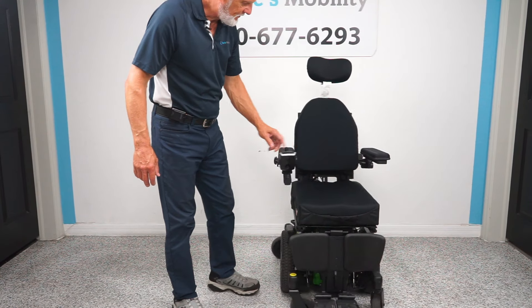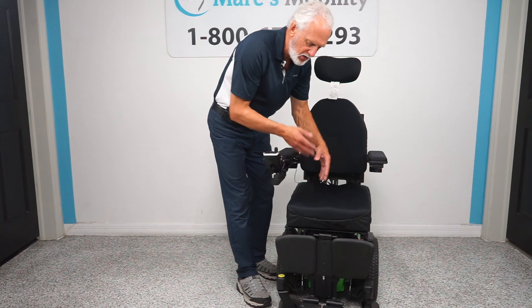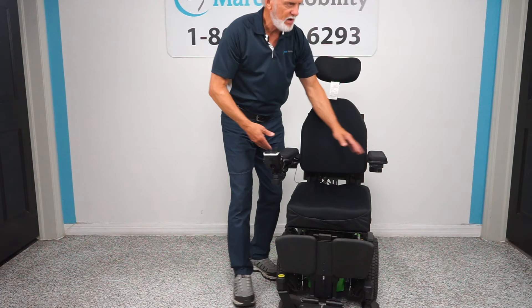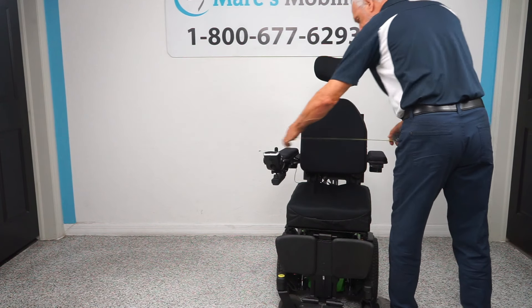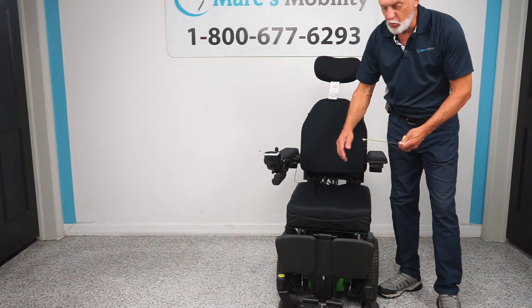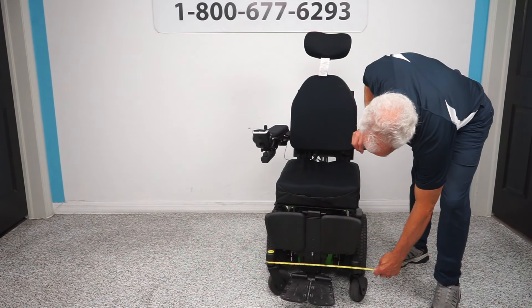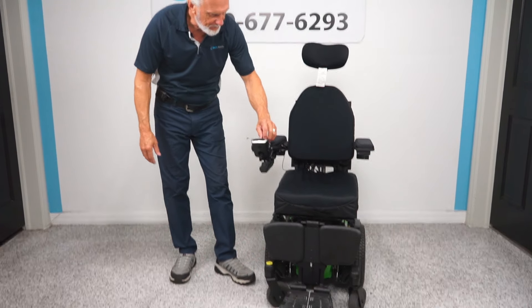The seat on this chair right now is about 16 by 18. We can make the seat a little bit larger and still keep the chair within 21 inches. Right now this chair is 22 inches wide to go through a door, and we can bring these arms in a little more to make it 21 inches because the base is only 20 to 21 inches. It's a very narrow chair but you're still getting all the benefit of a big chair in a smaller frame.